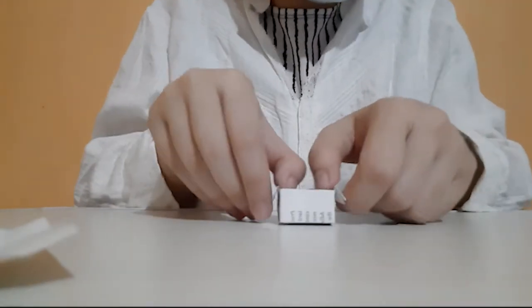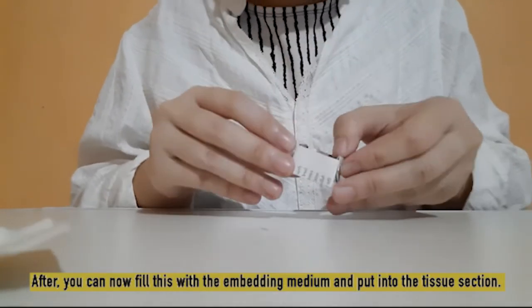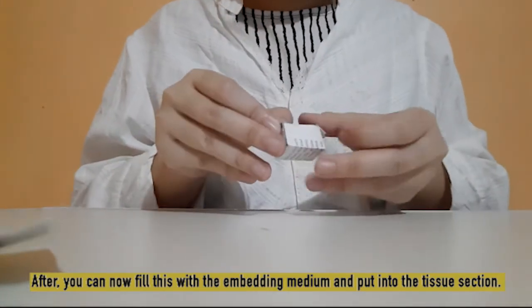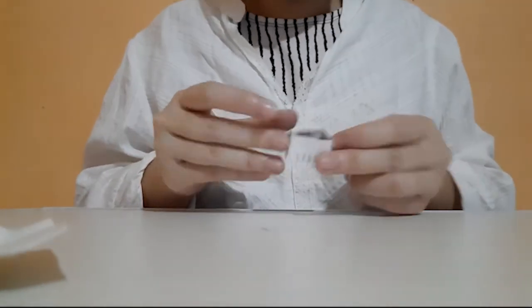After securing, you can now fill this with the embedding medium and then later on you can put in the tissue section. So that's how we make our paper boats. Very easy and very economical.